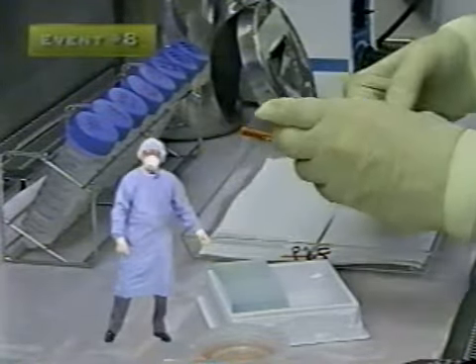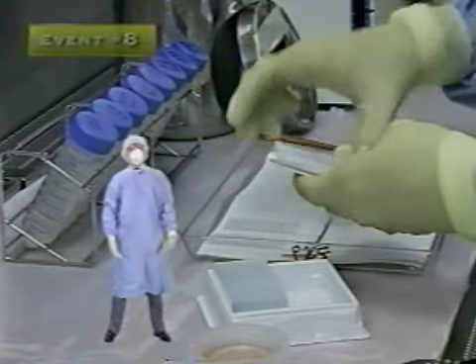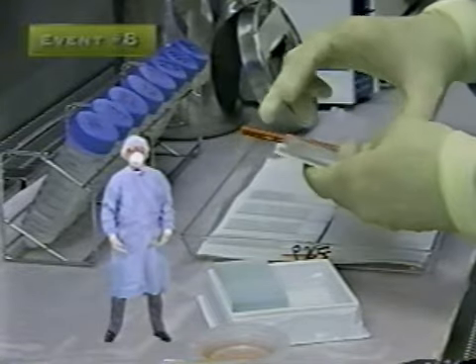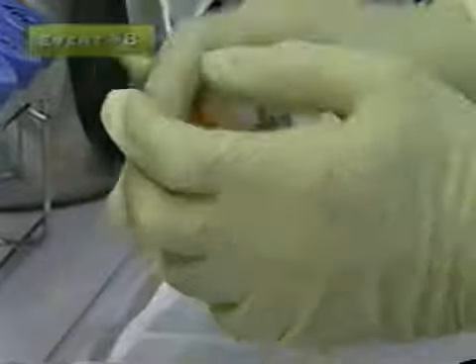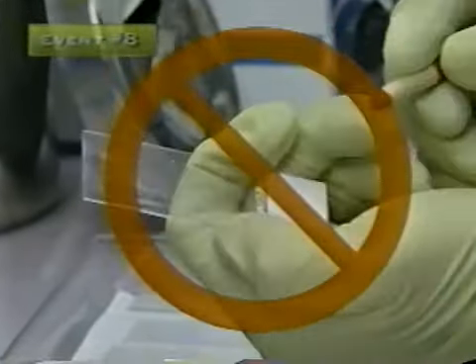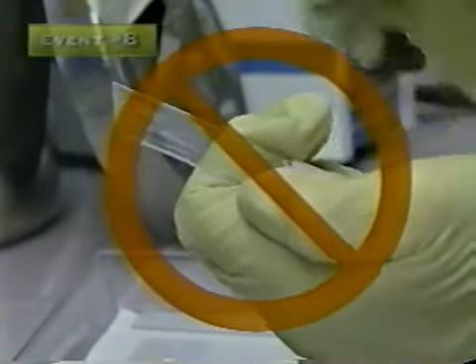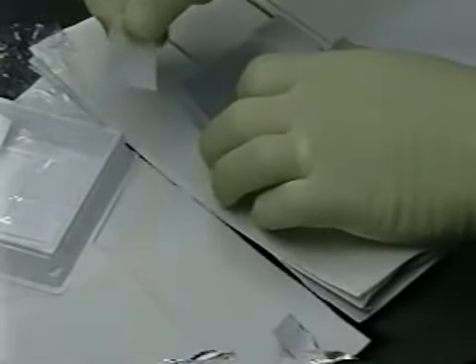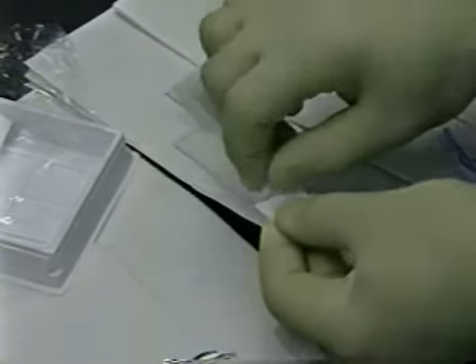Look at this! Did you spot those dirty, greasy slides? Doesn't that worker know that grease may coat non-acid-fast organisms, making them retain the stain, that dust and dirt may contain environmental acid-fast organisms, that scratches and old slides can retain organisms and debris? Yes, you should always use new, clean, unscratched slides. Before use, you can clean slides by wiping them with 70% ethanol and allowing them to dry.